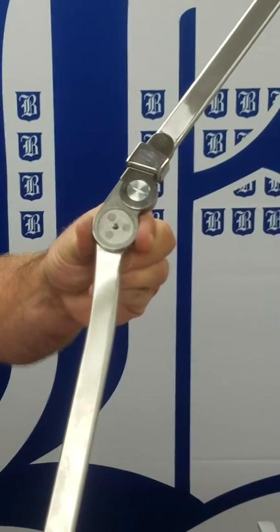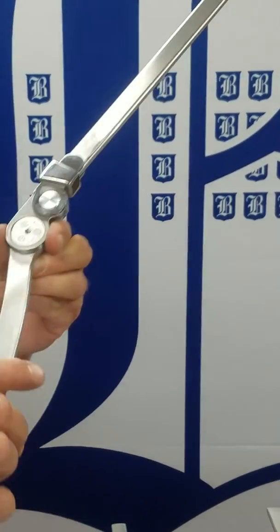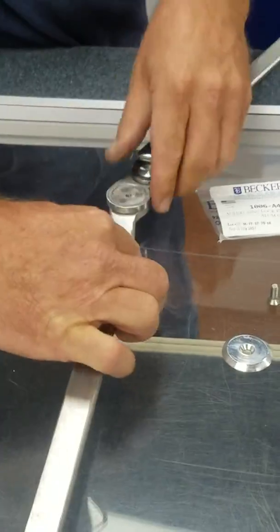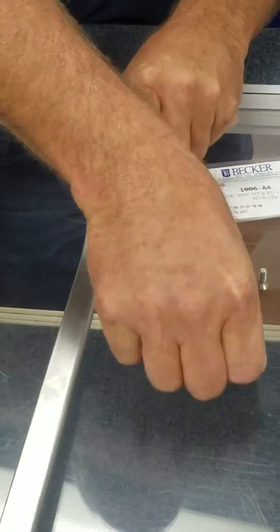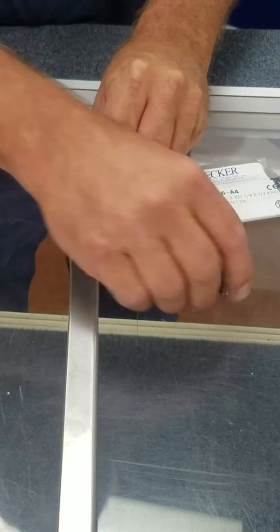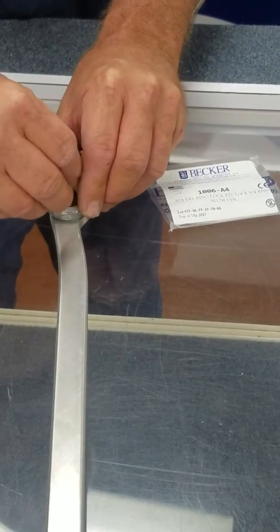You can also set this in hyperextension. It's as easy as changing that to fit your patient and putting the lid and 1032 screw back in.